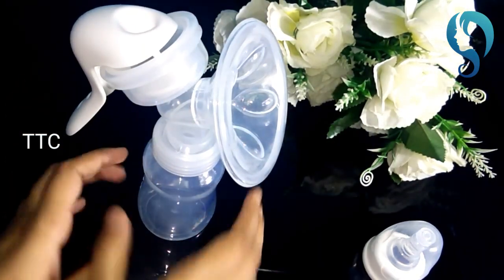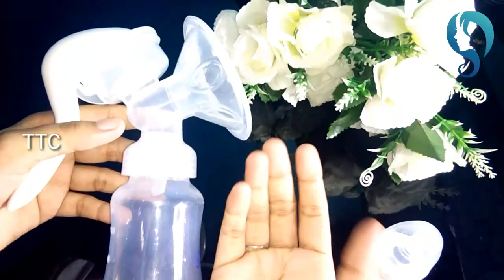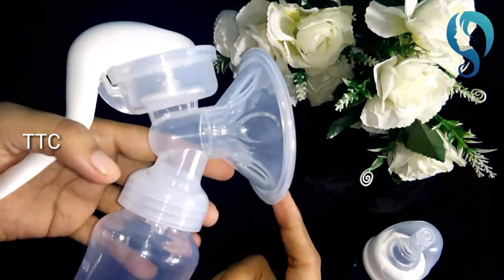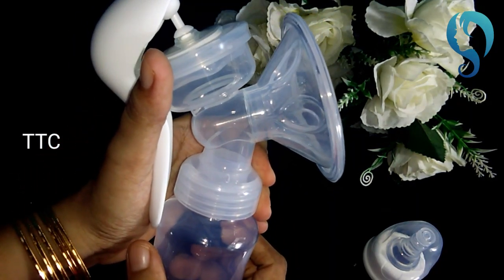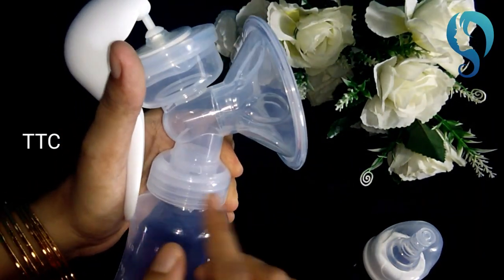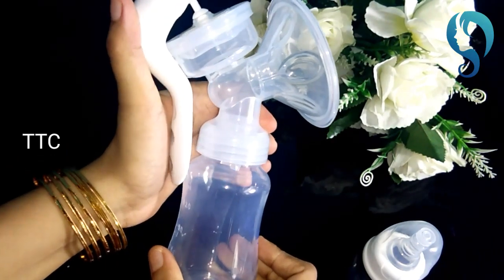Let's do this. Make sure you keep it straight. If you keep it straight, positioning will be normal. You can set the bottle in a straight position and set the cover for your breast adjustment. You can hold it in one hand and place it on the bottle. Once you press it, you create pressure with the milk, and once you release it, the milk goes into the bottle.